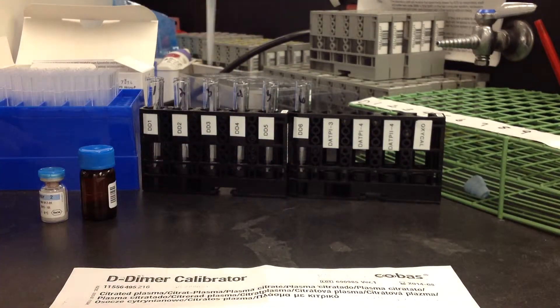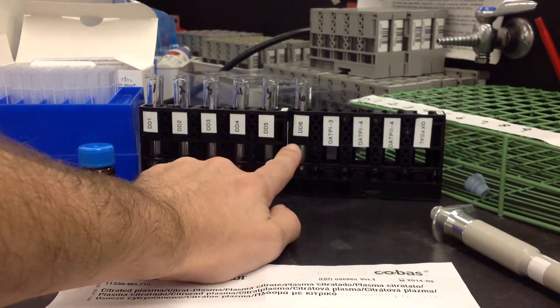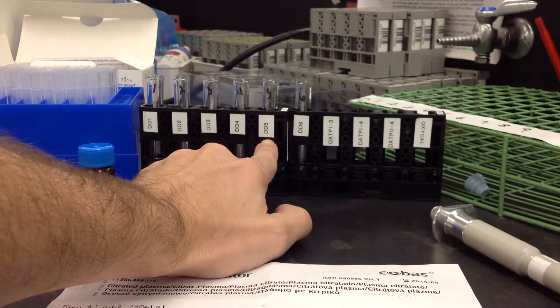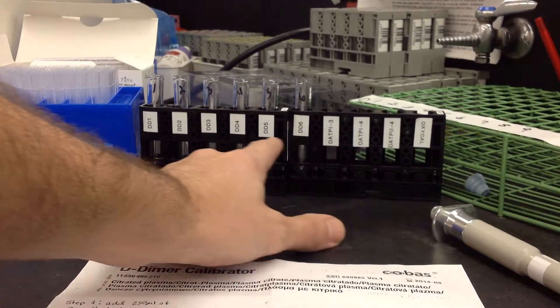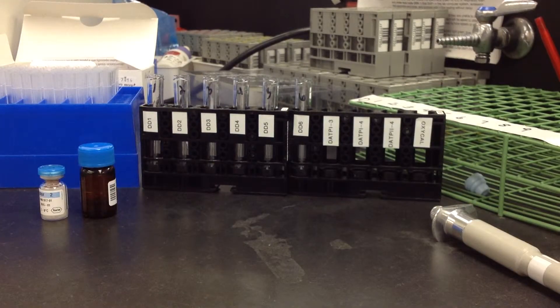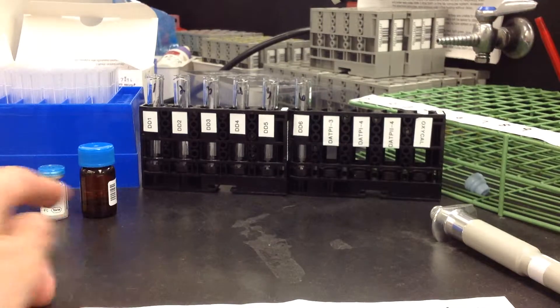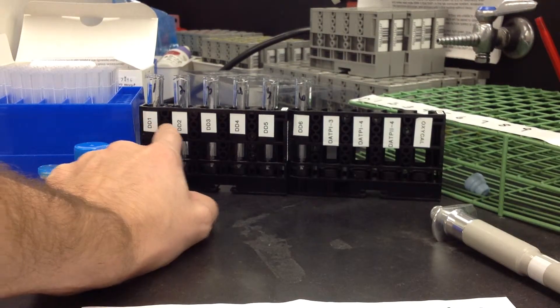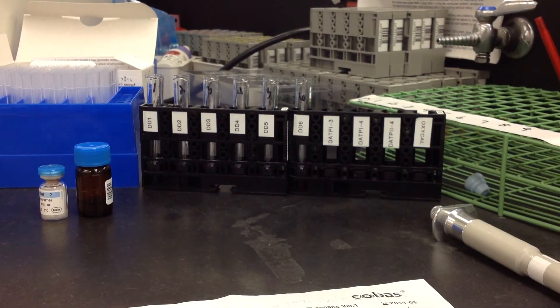Just remember that you are not going to do this to position 1. You start here, 250 microliters, and you just serial dilute 250 microliters down, and you stop at tube number 2. Make sure that you change pipette tips to reduce the amount of carryover. I don't know if that's an actual step in the protocol, but that's what I do and it usually works for me. So as it's set up, this will be your zero, and it will slowly get more concentrated until it's fully concentrated — 100% of the original calibrator. Hope that helps.